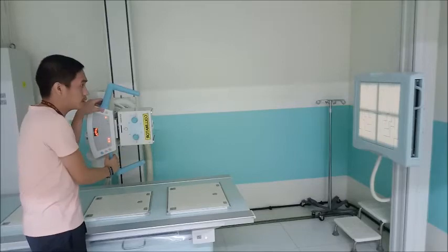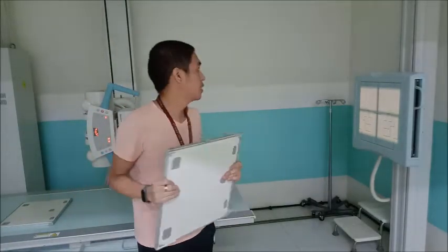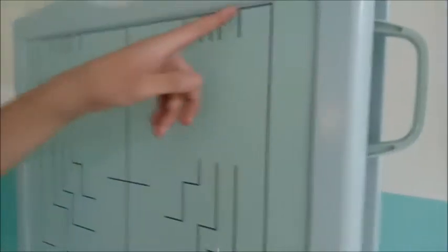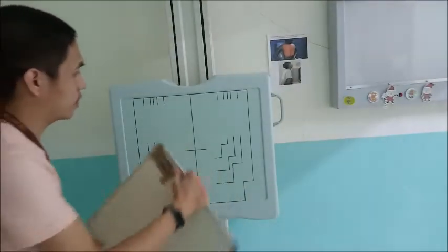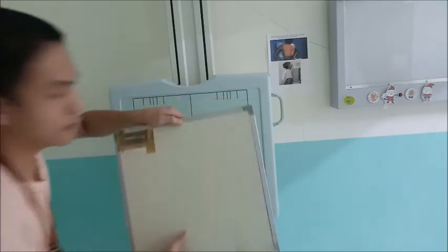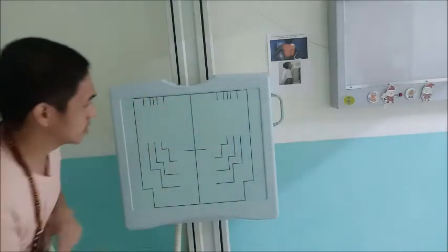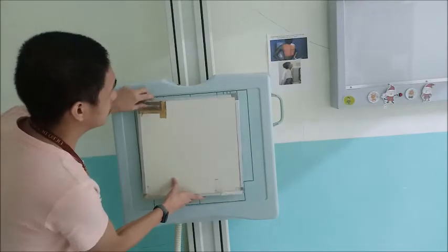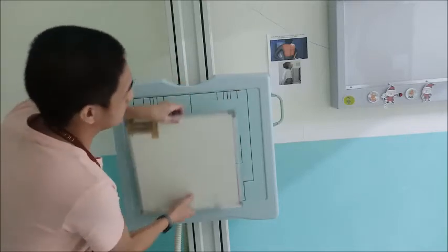Okay. So next we have the collimator. Again, the most common size is 14 by 14, but you can also use 14 by 17. And as mentioned in the previous video, you have the lines here that coincide with the different sizes of the cassette. Like for example, we will use a 14 by 14. Where is the center? This is the center of the IR. So you center it here, and check where it reaches at the bottom and also at the sides.